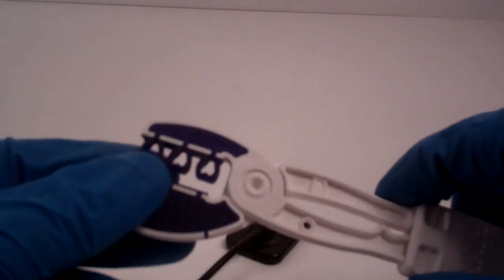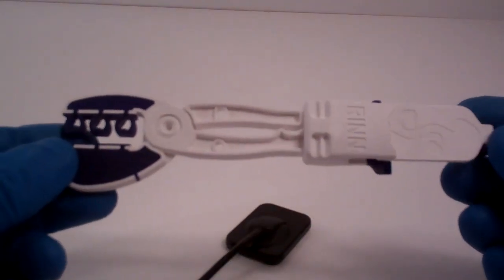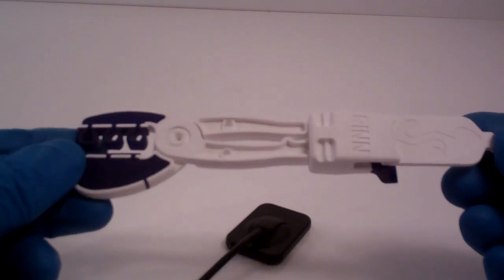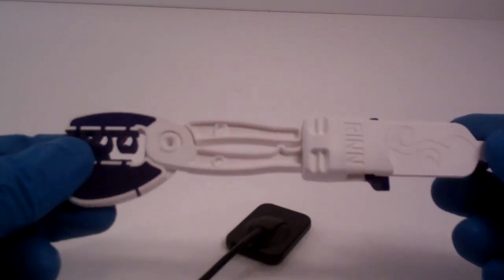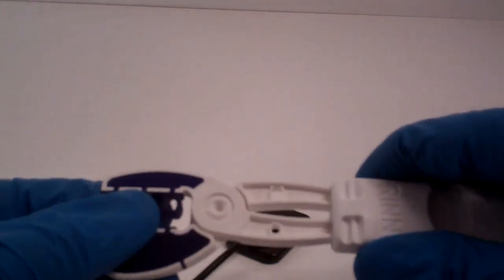The Snap-Ray DS is a digital version of the Snap-Ray that most of you have probably used with film when you were in class getting your degree. It's basically going to grip the sensor on the edge for your periapicals.